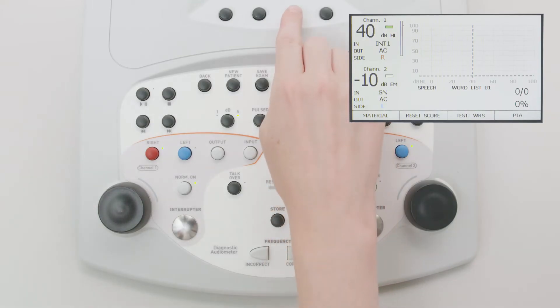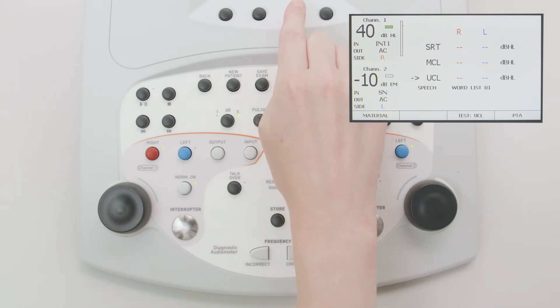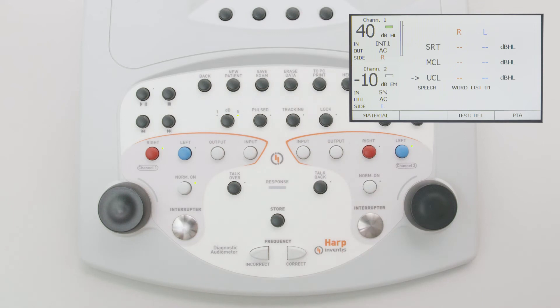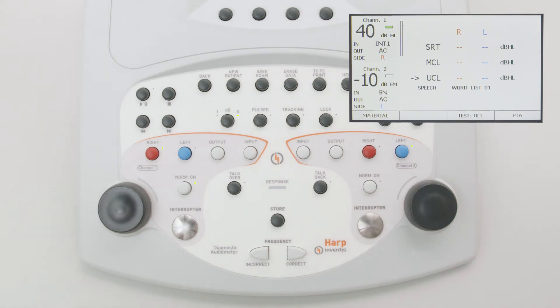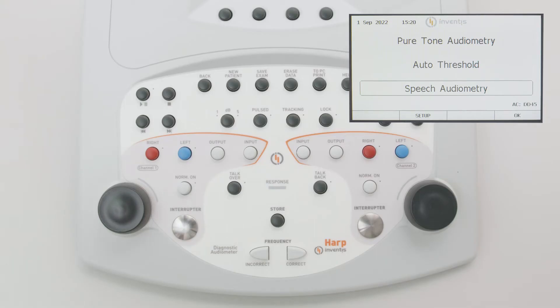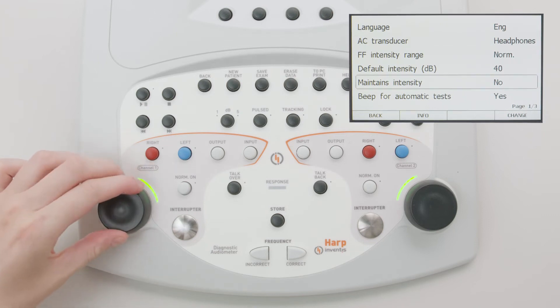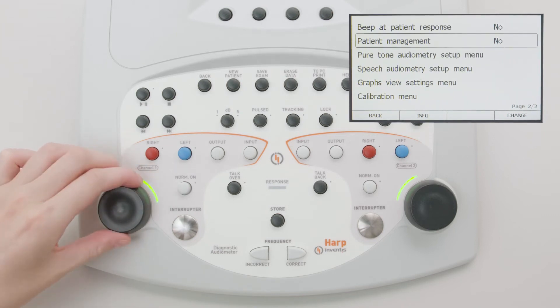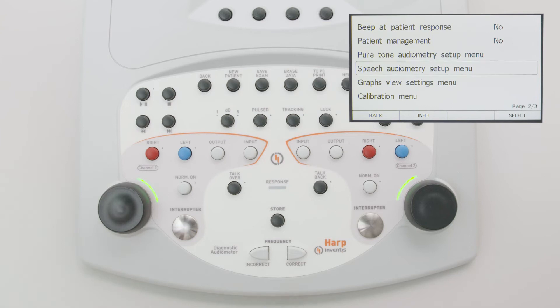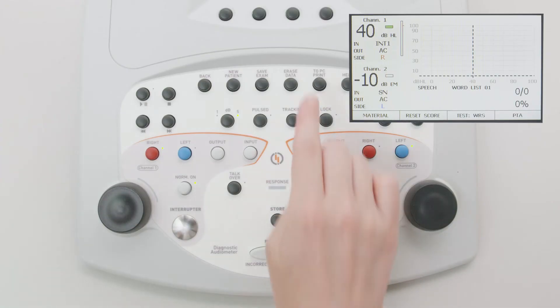The HARP audiometer can perform four different speech tests. It is possible to measure the standard WRS graph, or alternatively the SRT, MCL, and UCL thresholds. If the WRS single point option has been enabled from the settings menu, the word recognition score is calculated as a single point instead of using a graph. Use the function button F3 below the screen to change the current test.